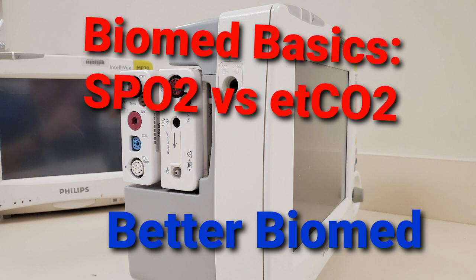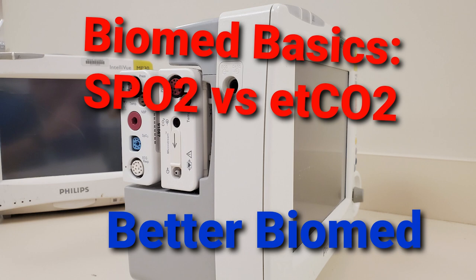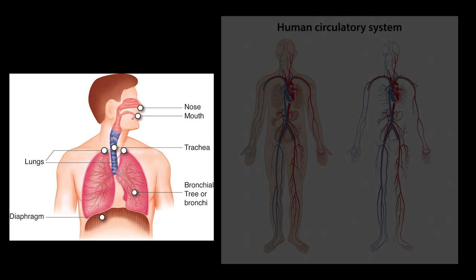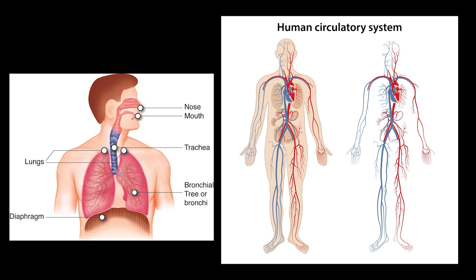Hello everyone, welcome back to Better Biomed. Today I'm going to give you another Biomed Basics video and we're going to cover pulse oximetry, which is SpO2, and end-tidal CO2 monitoring, which is also called EtCO2. Both measurements are used to monitor the function of the respiratory and circulatory systems, but how they function and why they're used are quite different in application.